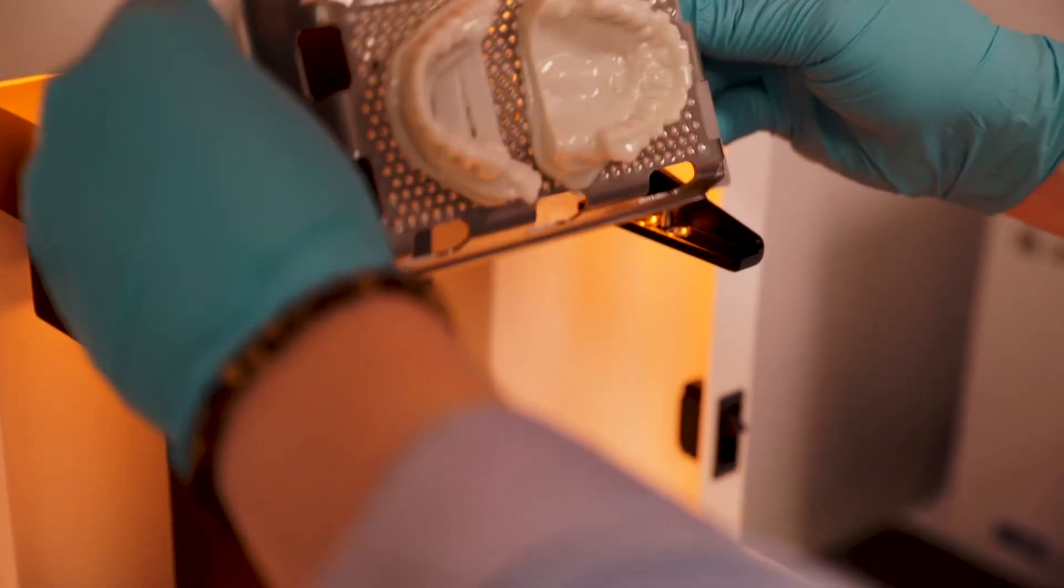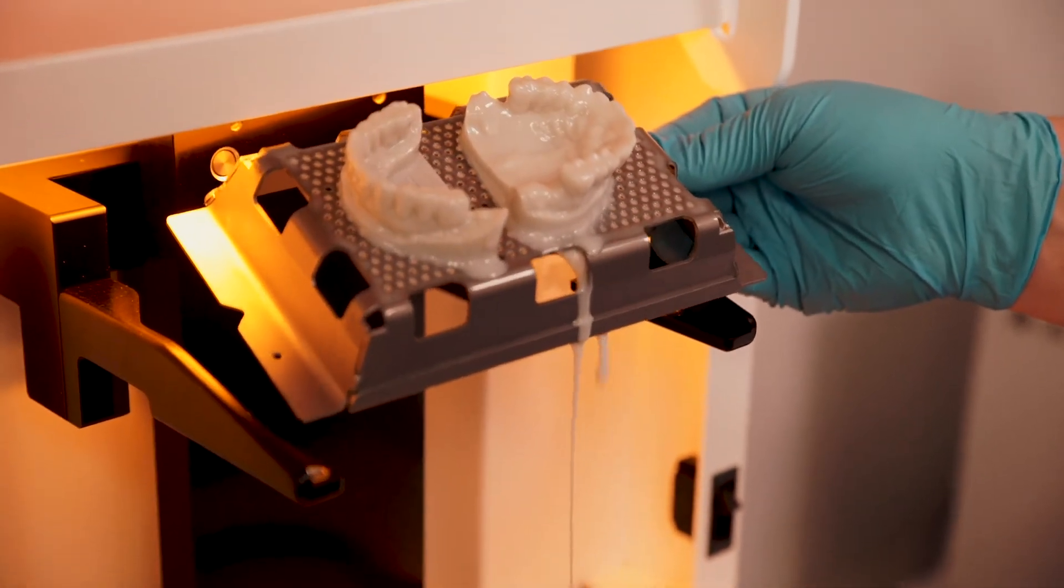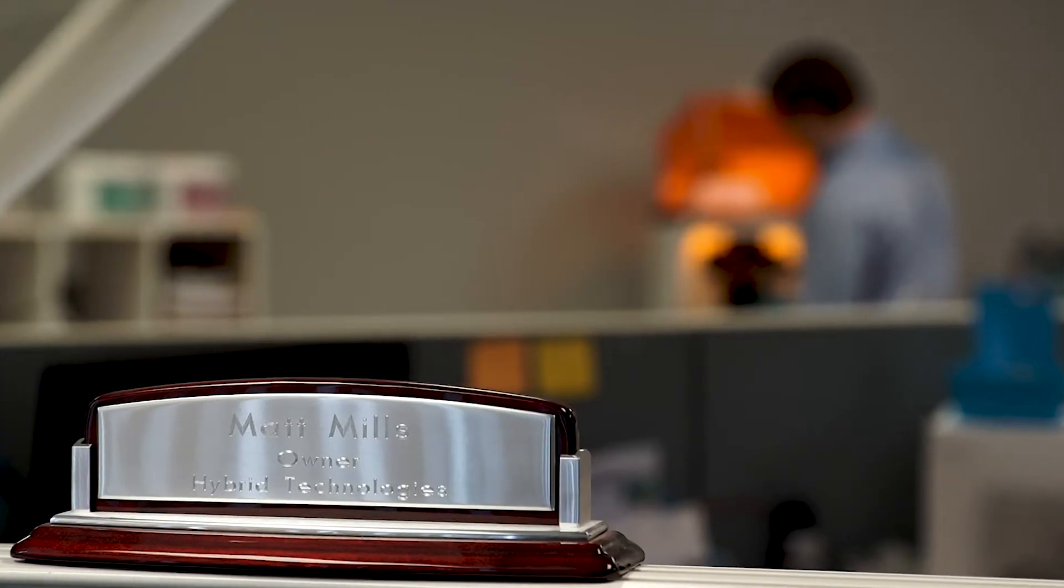When I got my printer here in the laboratory it was like Christmas. We set it up in 15 minutes, that's no joke. 15 minutes out of the box and it's printing.